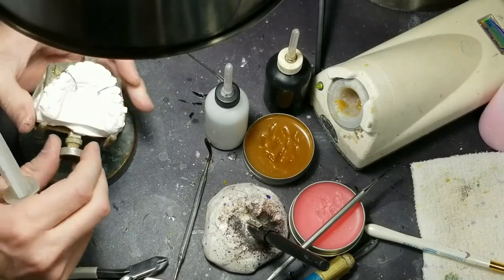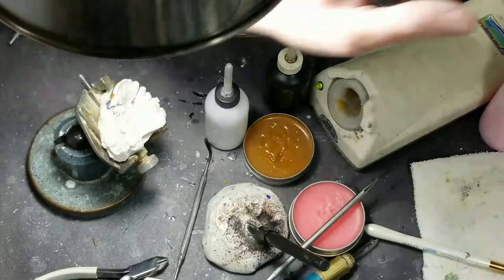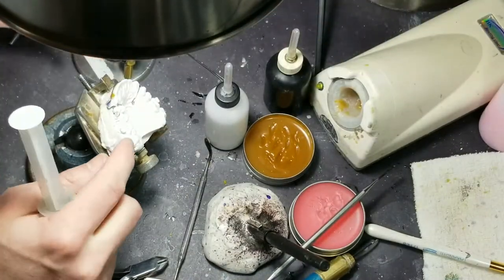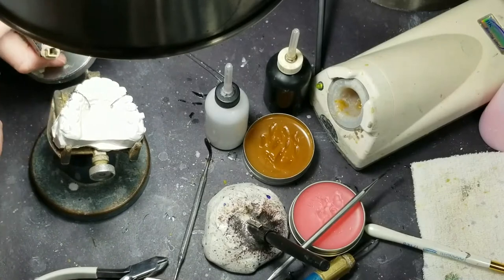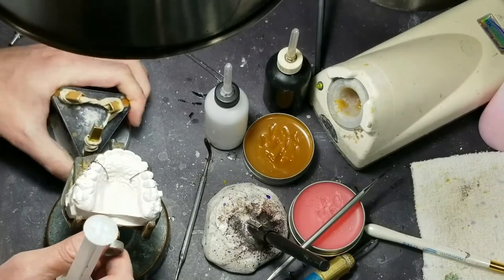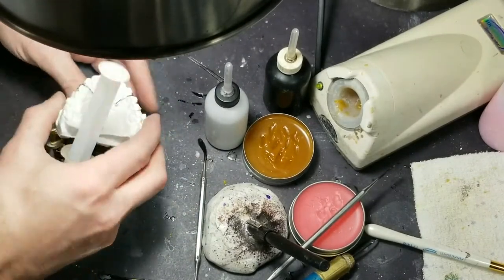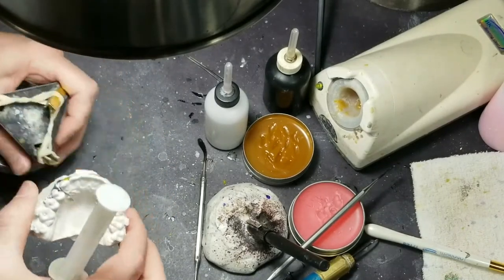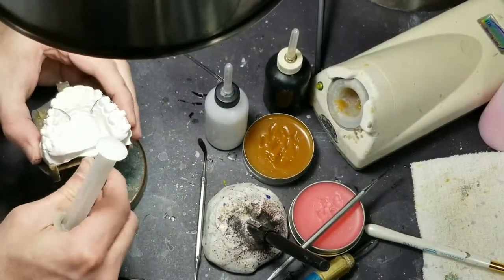It's really annoying when the cast keeps slipping on the desk. I can't stand it. This model holder is great for trimmed models with a flat base. This one is good for untrimmed models — you just put it in the teeth right here. And I like it for soldering because then I can angle it a certain way.